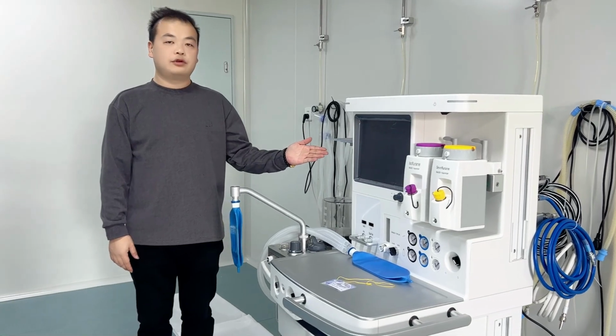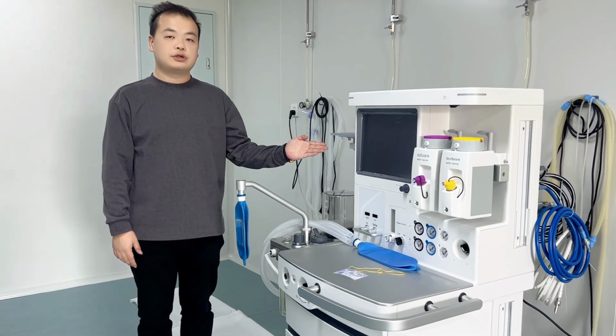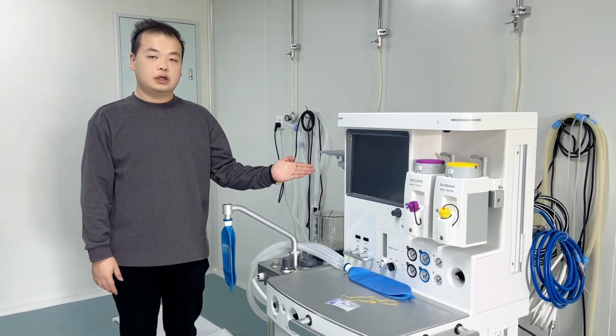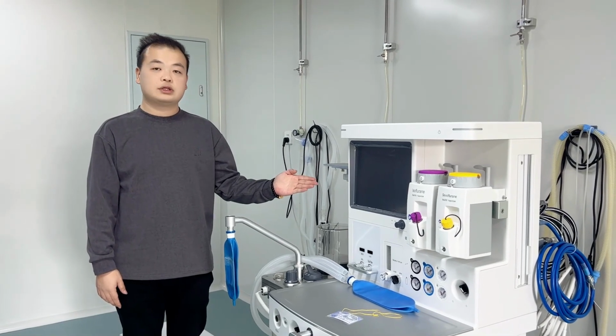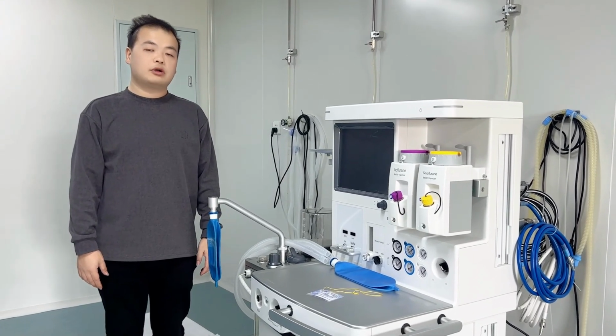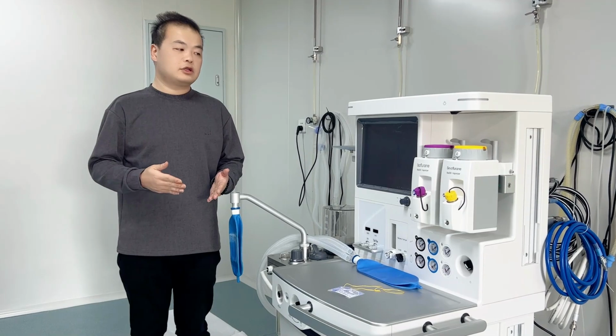So today I want to give you the introduction for our S6200 anesthesia system. This video is for the operation and the introduction for each accessory and also the machine functions. First, I would like to introduce you to the assembly and the spare parts for this machine.